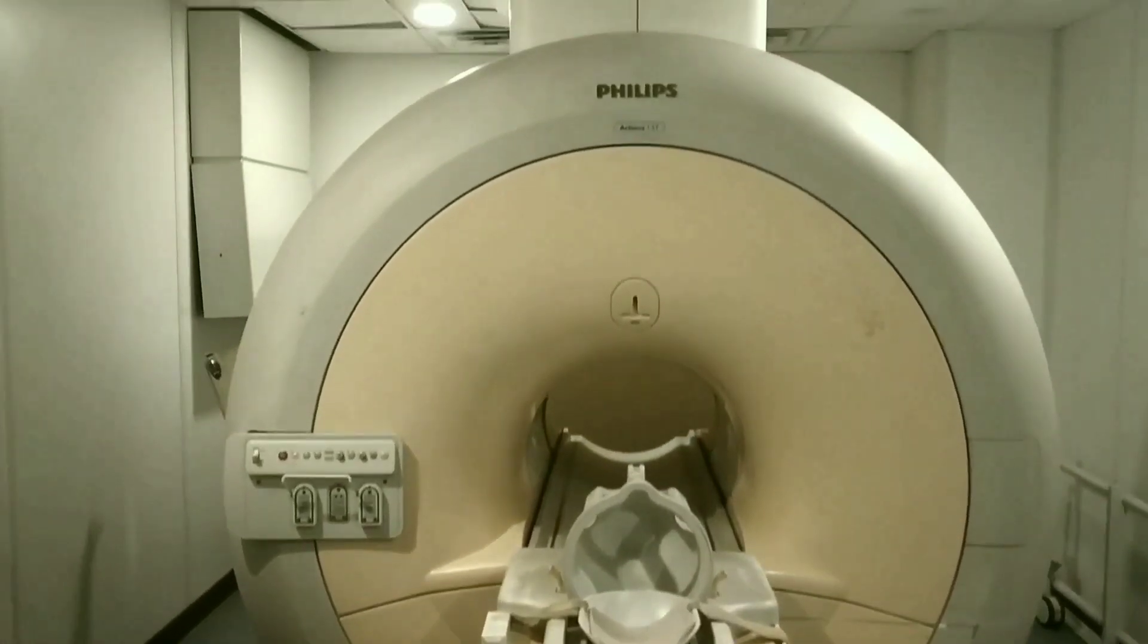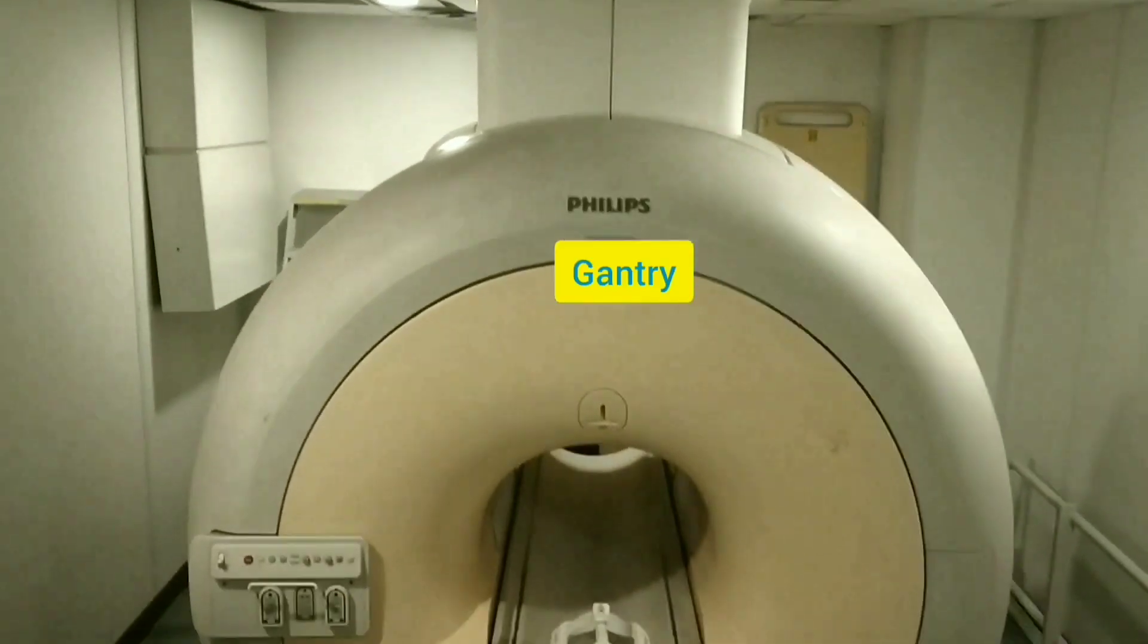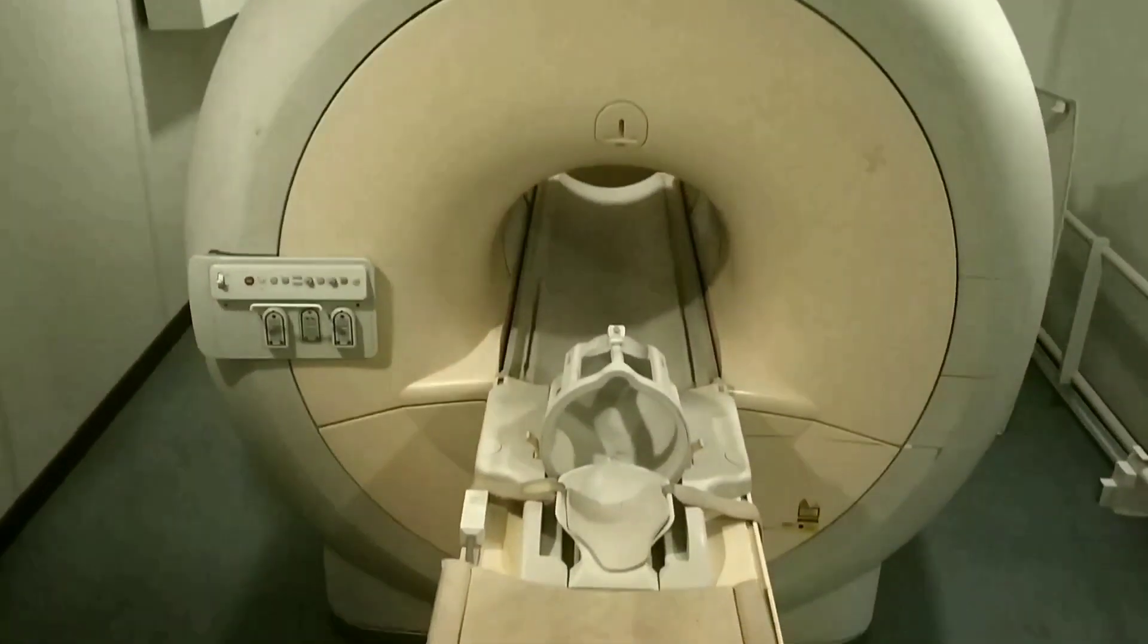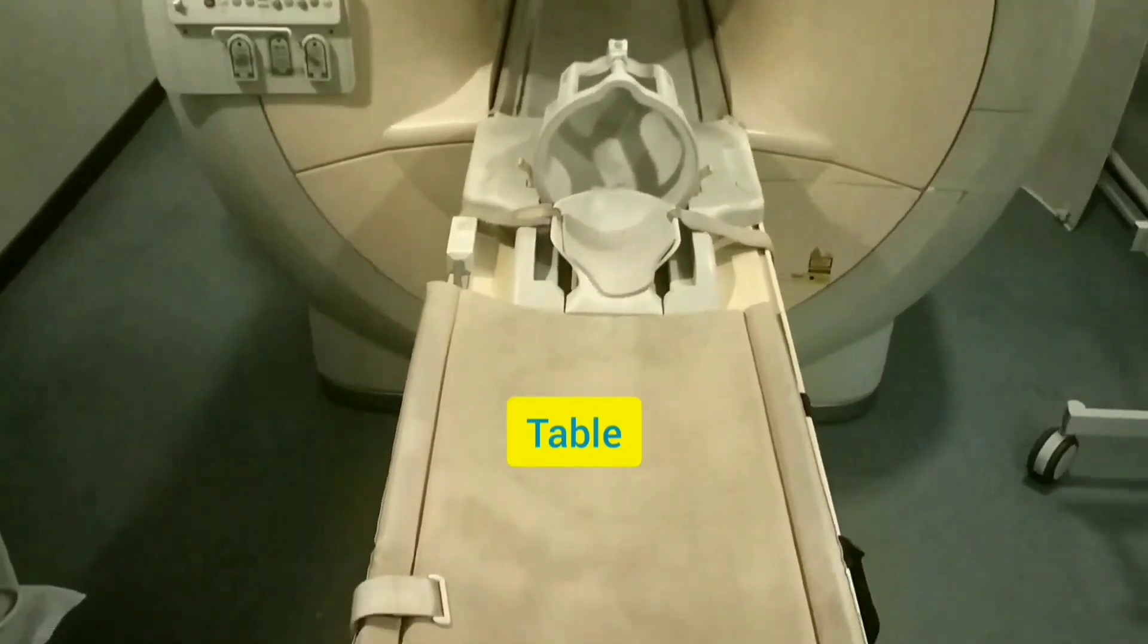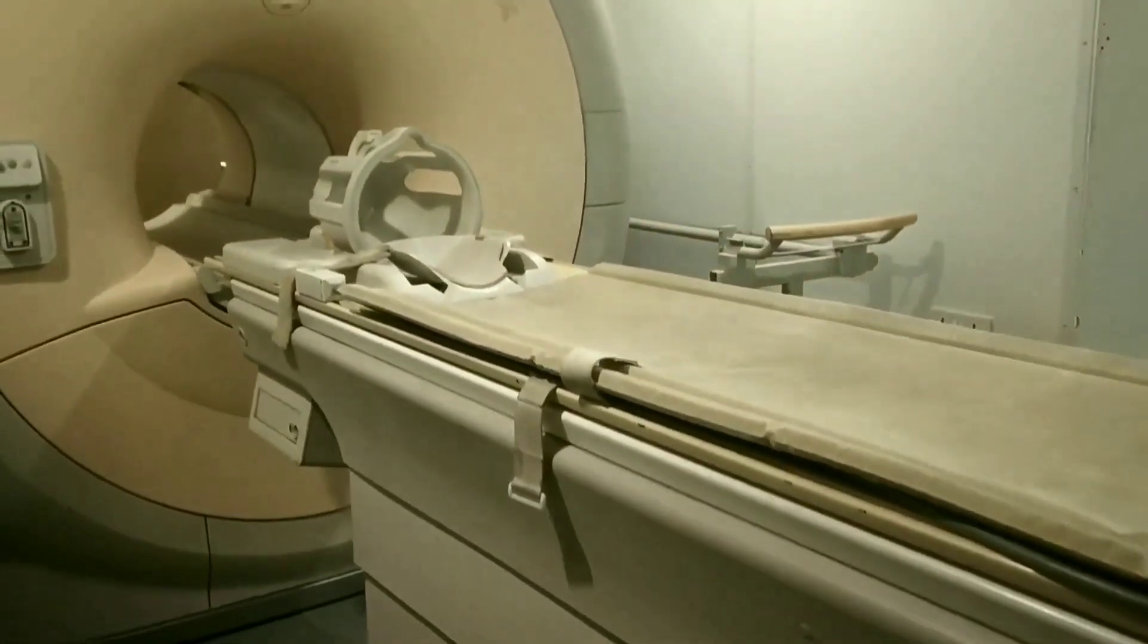Magnetic resonance imaging is a non-invasive test which gives substantial detailing in the world of medical imaging. The softest structures are more accurately visualized. This is an overview of MRI scan. There is the table, there is the gantry.